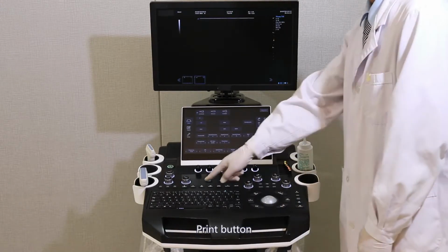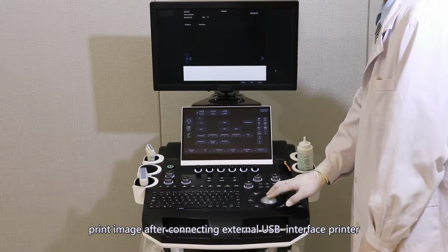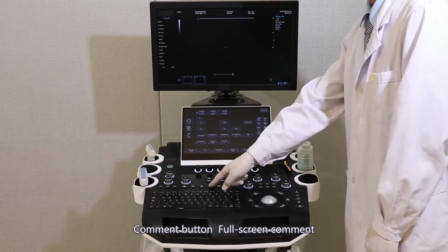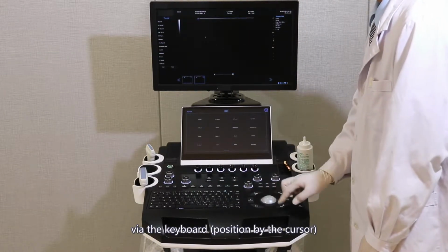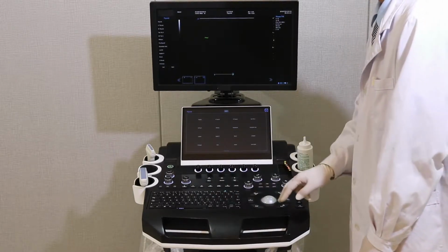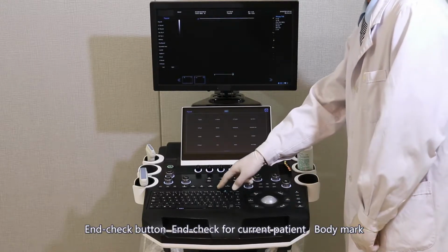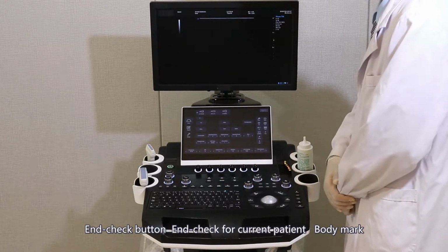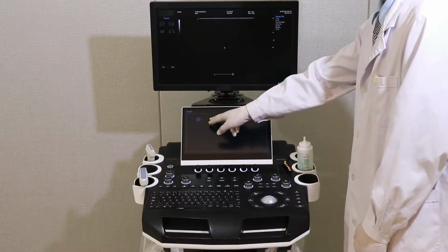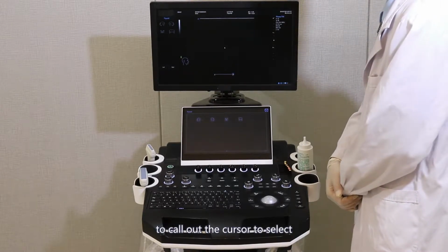Print button. Print images after connecting an extra USB interface printer. Comment button. Full screen comment via the keyboard. Position by the cursor. End check button. End check for the current patient. Body mark key. Press the cursor key to call out the cursor to select.